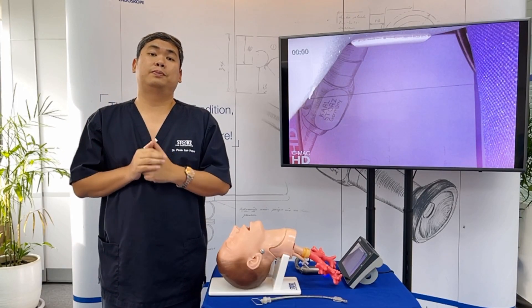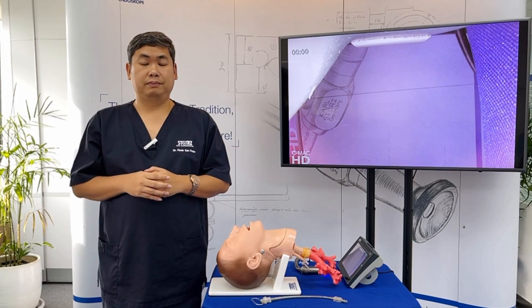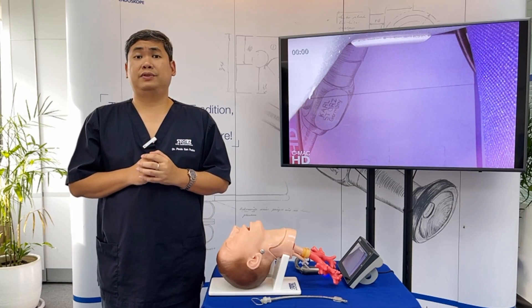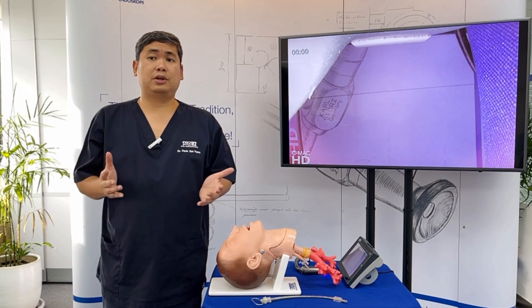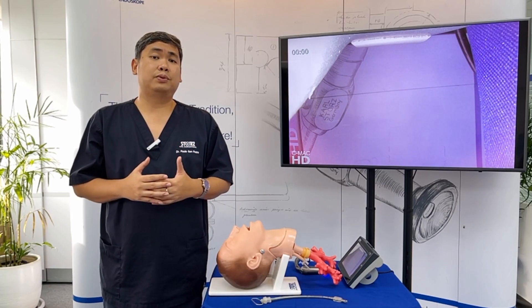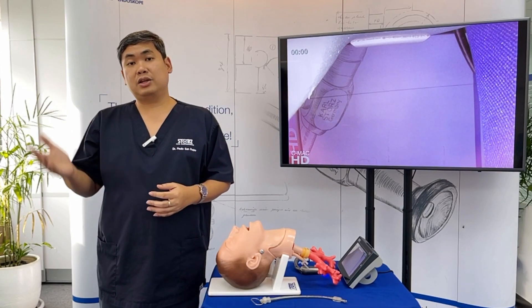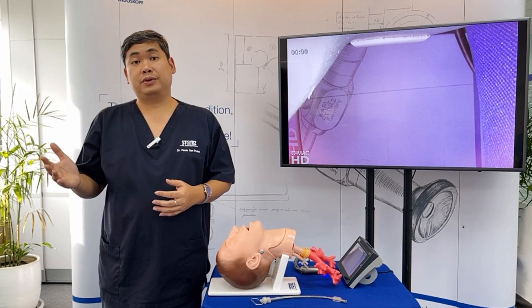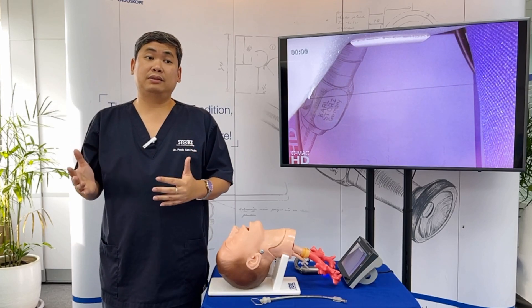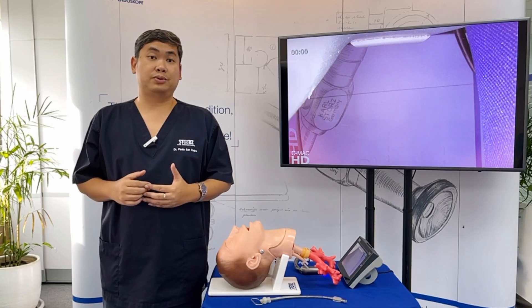There are two general groups of people who attend a video laryngoscopy workshop. The first group are people who haven't used the video laryngoscope and they attend the workshop so that they could justify that it could improve their practice. The second group are people who already have a video laryngoscope and attend the workshop so that they could maximize its use.